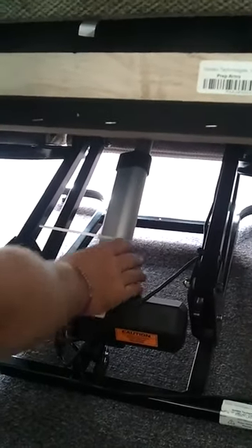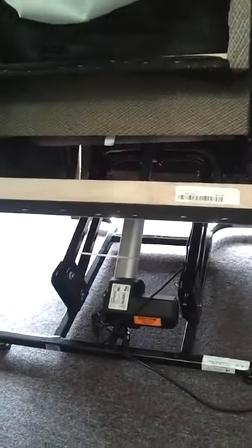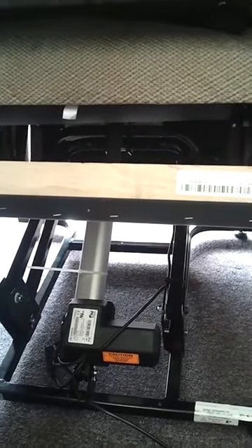It's pretty easy. You have your brackets for your chair and your motor for your chair. Most times it's not going to be your motor that's the problem — it's going to be in the controller or it's going to be your power transformer. These are your scissor mechanisms, and if you're sitting in it wrong, these will bend.